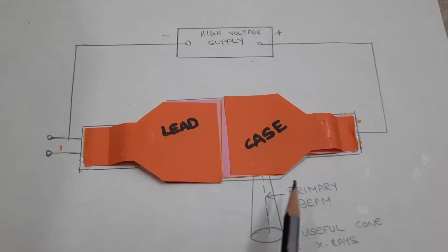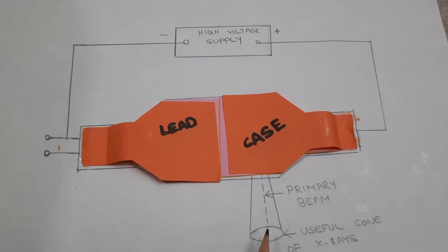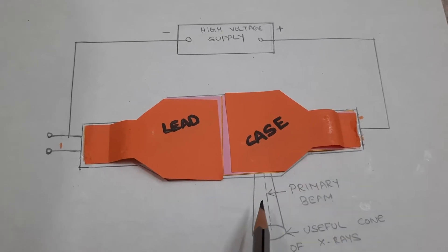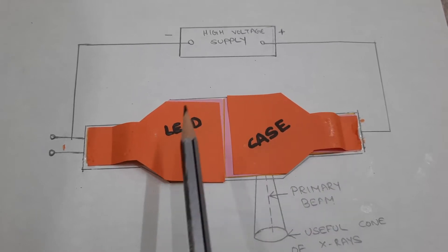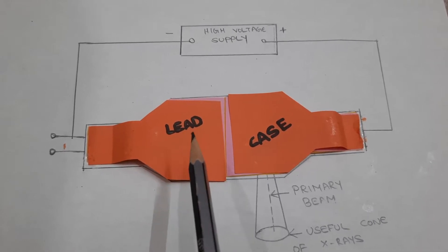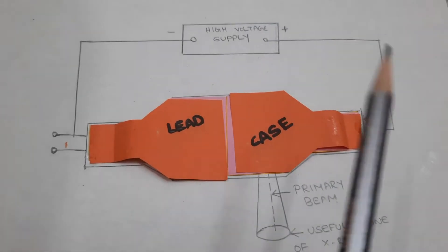This is the window. Only through this window do x-rays come to the external environment and pass through the patient to produce images. Apart from this window, x-rays should not leak from any other area of the x-ray tube, which is why we insert the x-ray tube in a lead case — to prevent leakage in other directions.